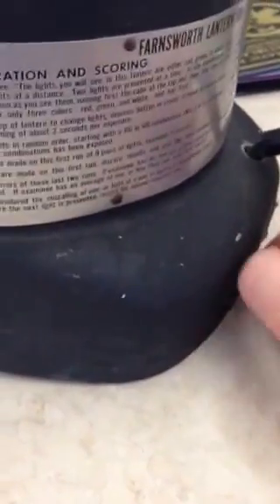You want to present them for about two to three seconds. If the patient wants to see them again, you let go of the button to not burn out the bulb and press it again. The only adjustment you can make on the Lantern is the height, and this is done at an eight-foot test distance with the room lights on. This little thumb screw here allows you to tilt the Lantern up or down, and that allows the patient to see it from the exam chair. They can wear their correction for this test. The room lights are on, or it becomes a lot easier.